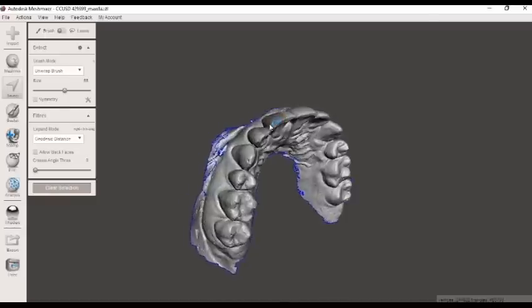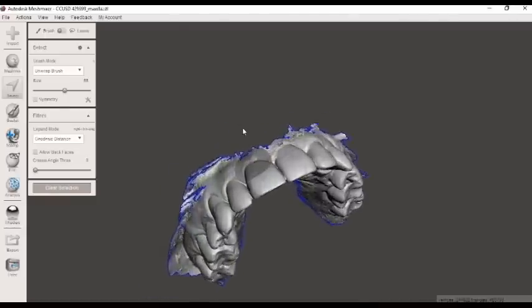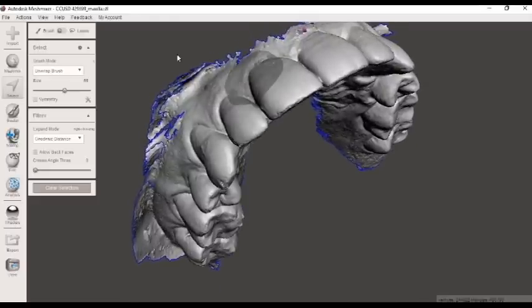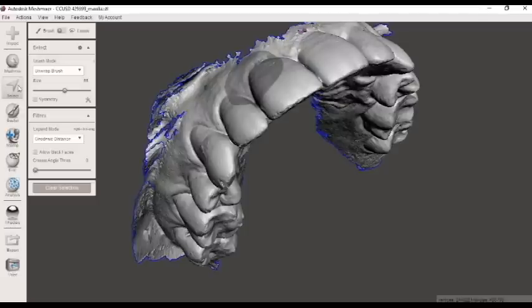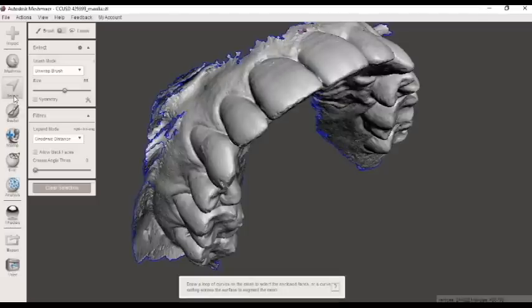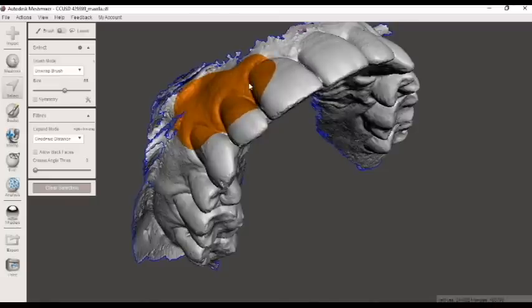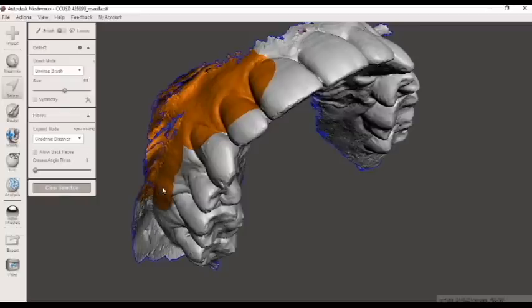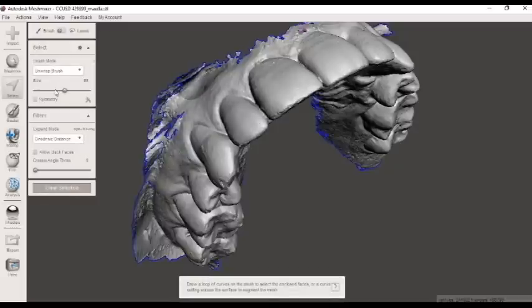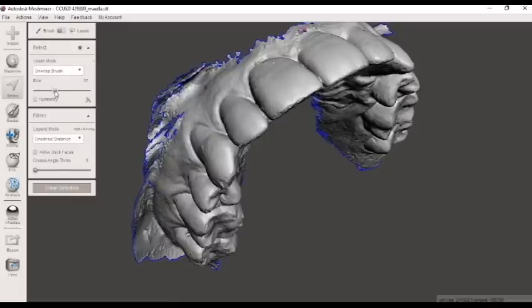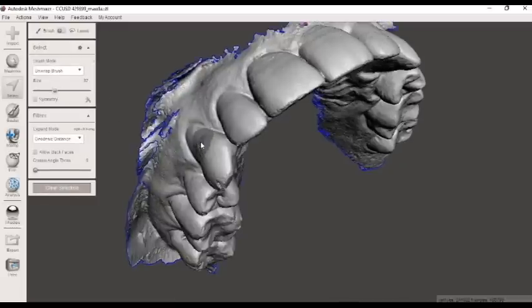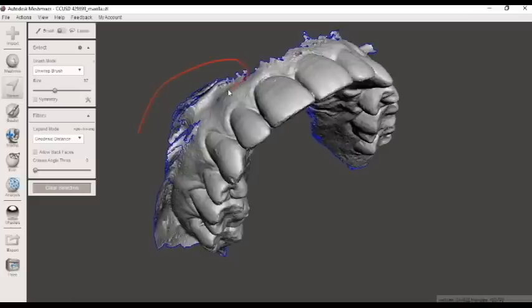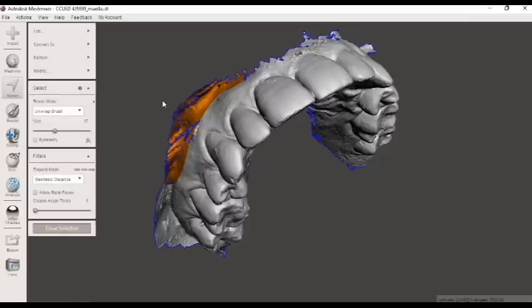Okay, then we choose done and select over here. We'll get to trimming away any of these extra edges. So really cool thing about the selection key, you can choose just by clicking on the mouse and selecting an area and it kind of rolls with the model here. But I like to use a feature here that we can just kind of lasso the items that we want to remove. So I'll just go ahead and draw a circle around what I want out, finish it off nice, then I'll just use my keyboard to delete it.